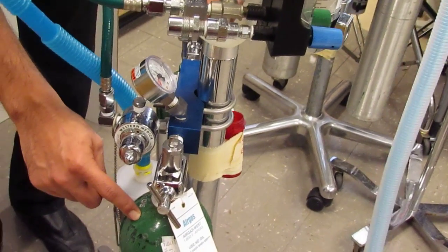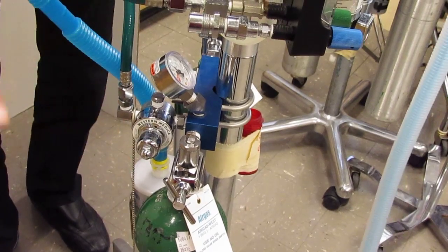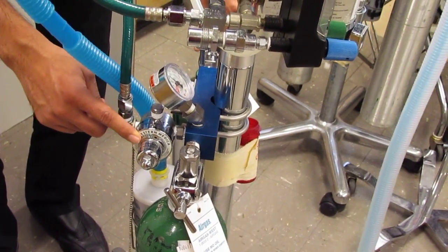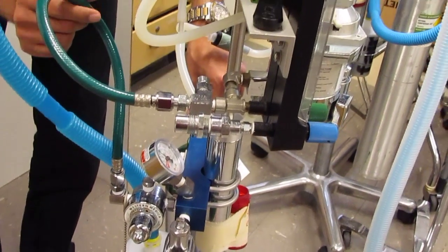Because the pressure that's coming out of here at 2,000 psi would blow away most of the components of our machine, it's too much pressure. We have to reduce it via the pressure-reducing valve to a usable level and that's what that does.